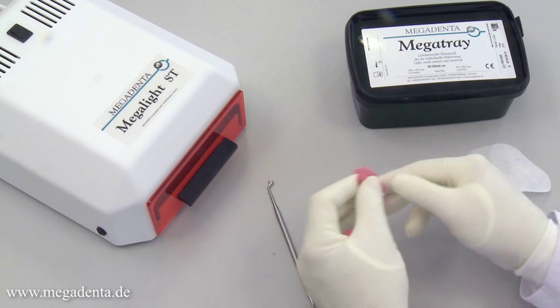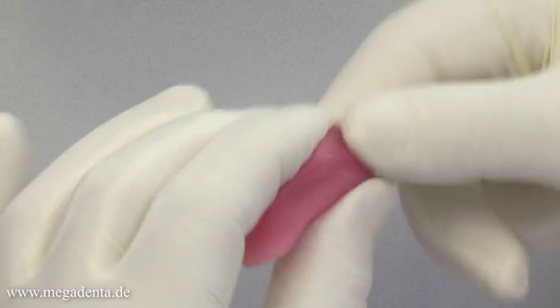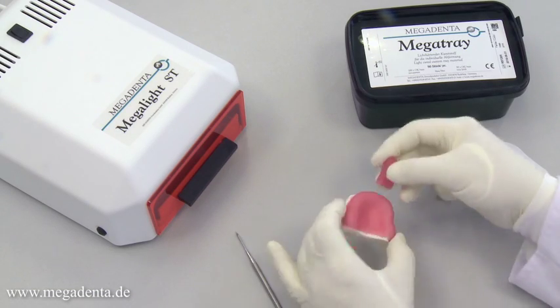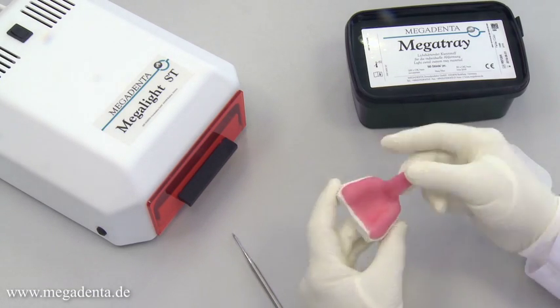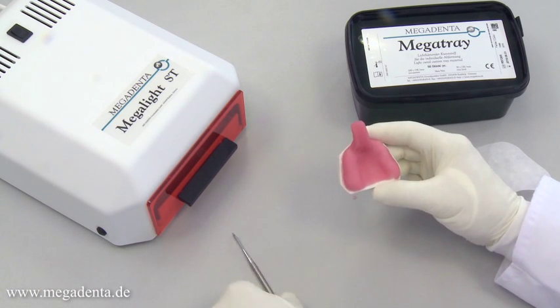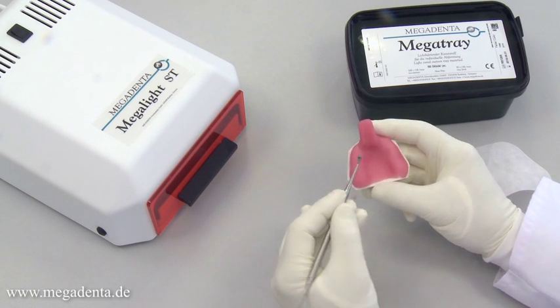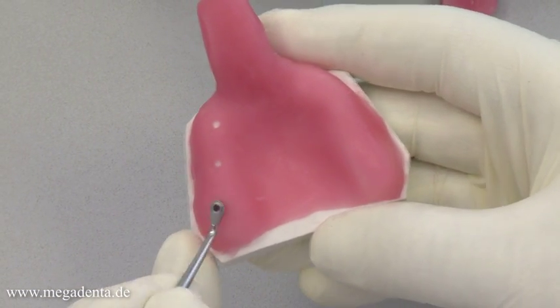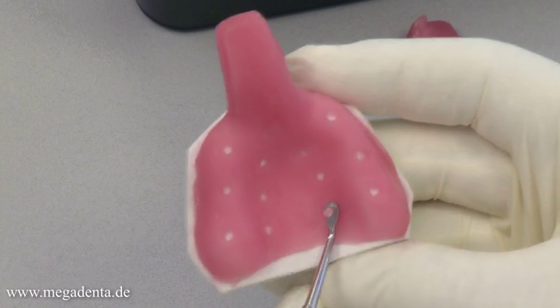The cut-off parts of the wafer can be used to form the handle of the tray. The molded handle must be safely adapted to the future tray. The Perf Master instrument has a small hollow punch perforator on the back to perforate the tray before the curing process. The perforated holes are used as mechanical retentions for the impression material of the future tray.